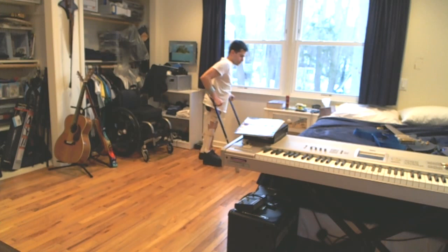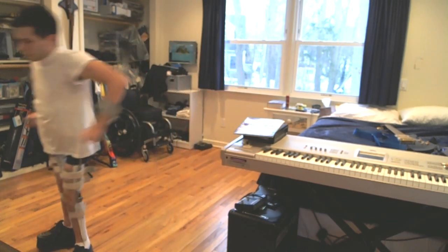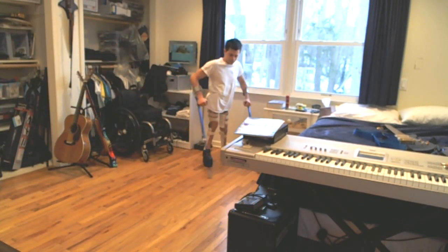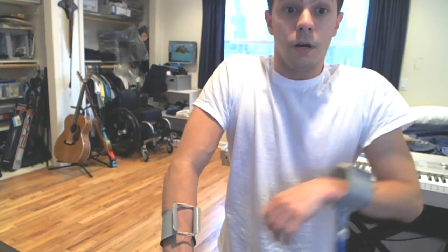What do you see? Hopefully you can at least see a little bit that it's different than the other way I walk when I'm doing short distances.